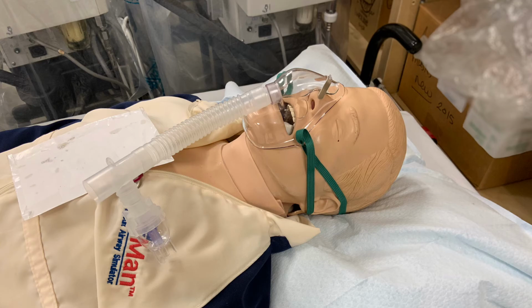It involves placing a T-piece into the system so that the SVN stays pretty much vertical. You would have to run source gas flow to power this device, and you'd have to block any aerosol from leaving from the left side of the T-piece. You could use a gloved hand for this procedure.